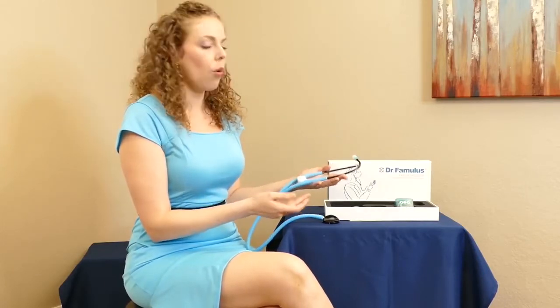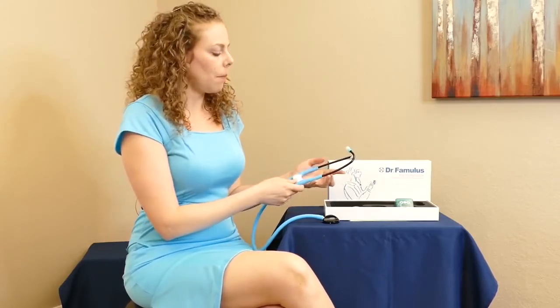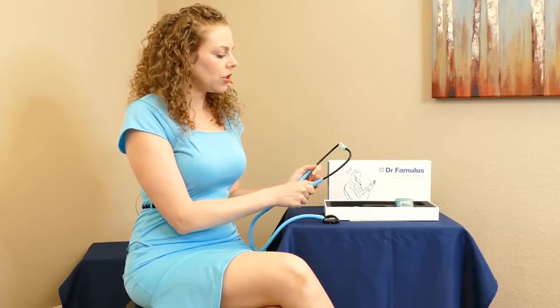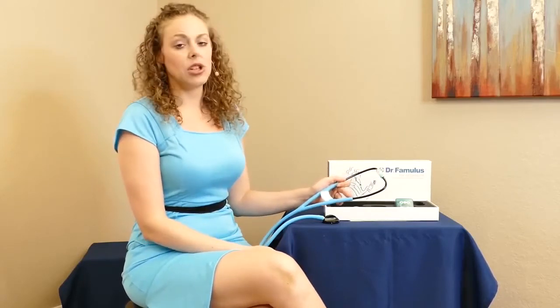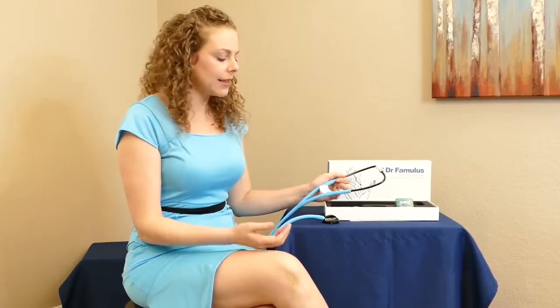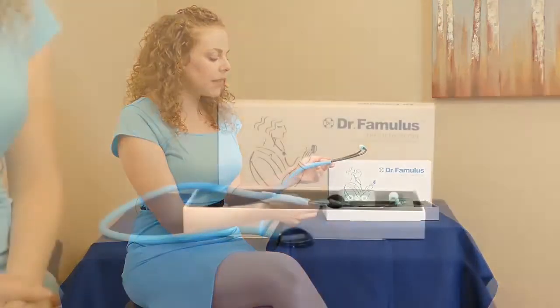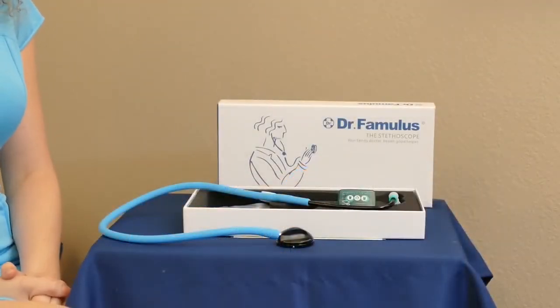It's a really great quality stethoscope — it's kind of in the mid price range. You can find stethoscopes that cost more than twice this, and you can also find much cheaper ones, but you get what you pay for. While there are stethoscopes at cheaper price points, I think this is great quality for the price in terms of getting something you can use easily. It's easy to clean and all of the maintenance pieces are laid out for you clearly in the instructions, so I think this is a great piece of equipment for professionals or for home use.